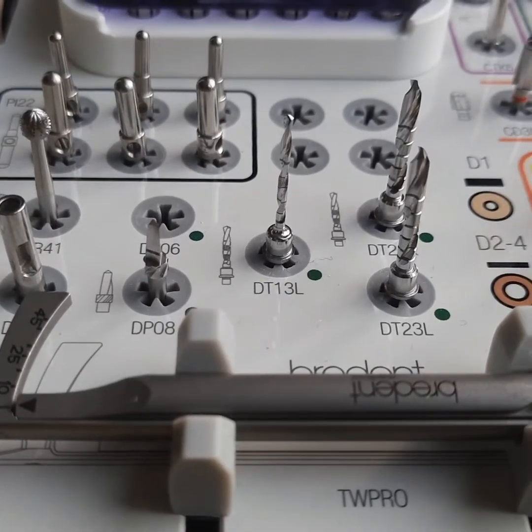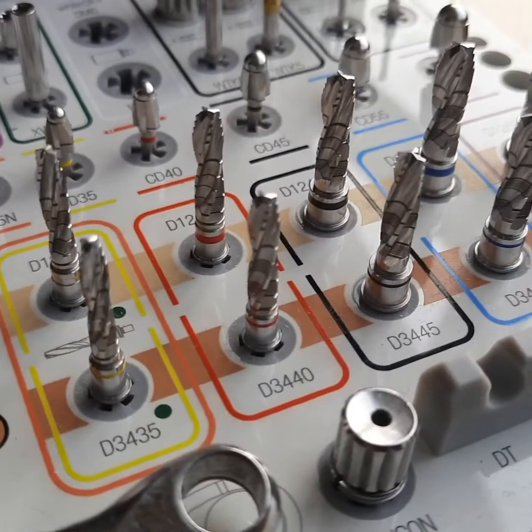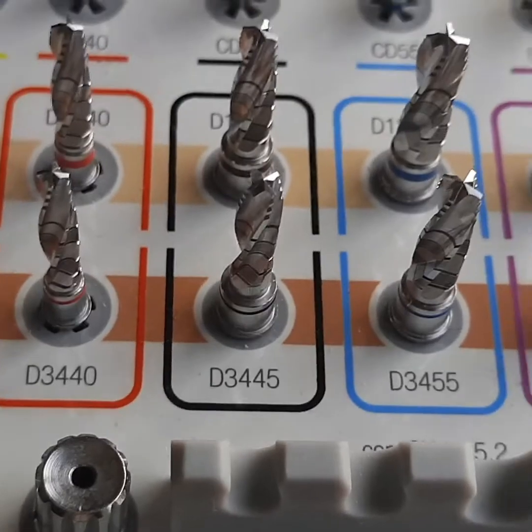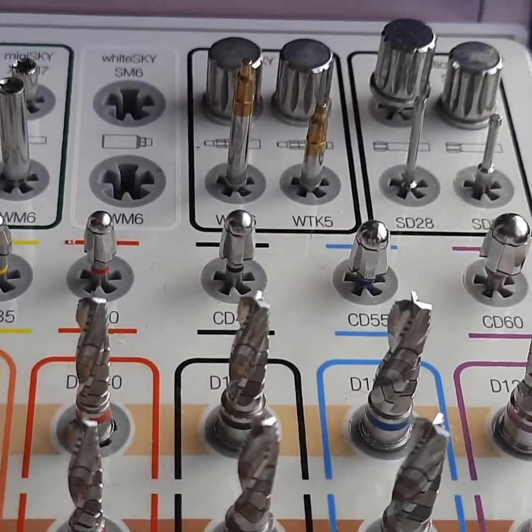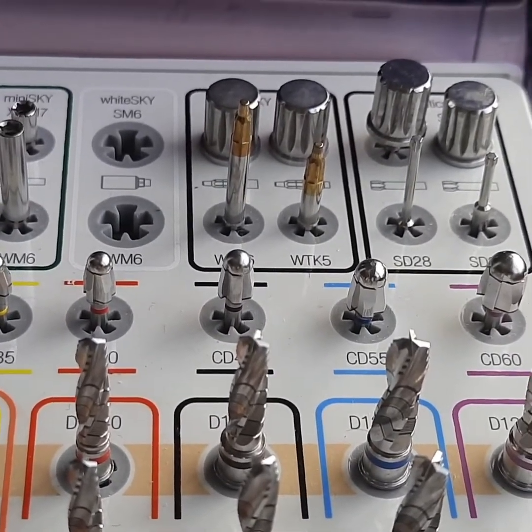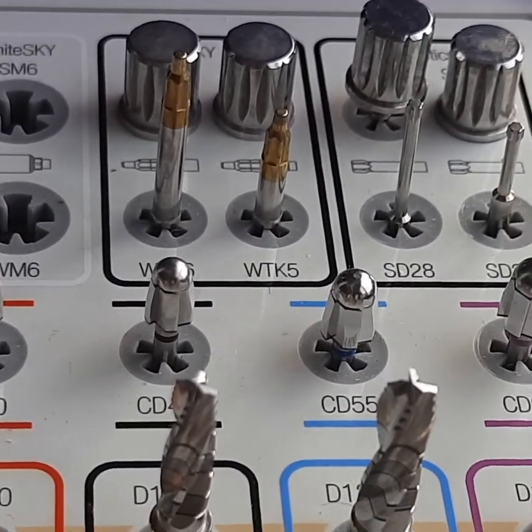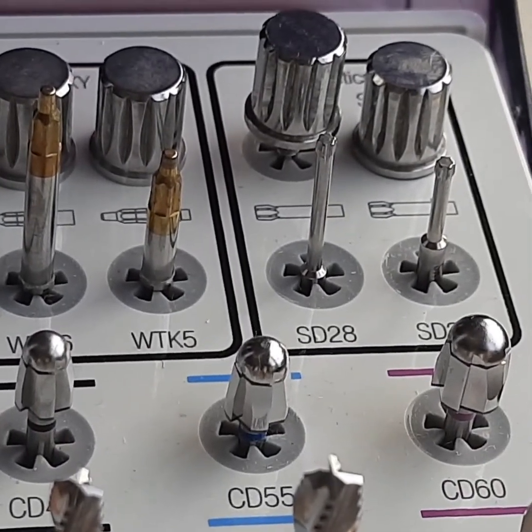The patient's bone density itself guides the drilling protocol. This means one would use the top-line drills with a thick band for D1 or dense bone, and conversely prefer the bottom-line thinly-banded drills for softer densities, namely D2 to D4. The crestal drills are placed just above and arranged according to diameter. The implant carriers and torx drivers occupy the top-right corner of the layout.